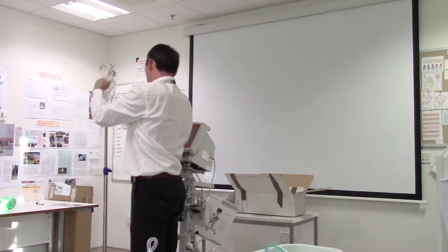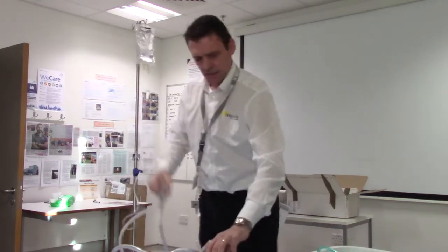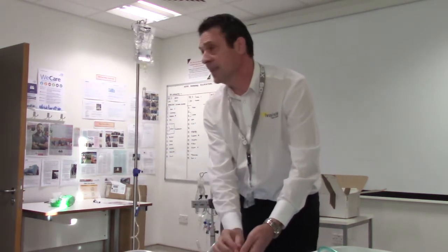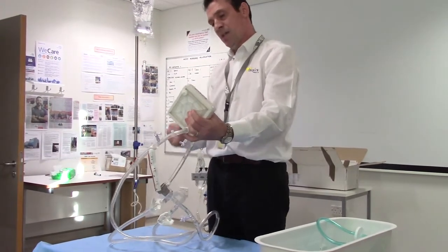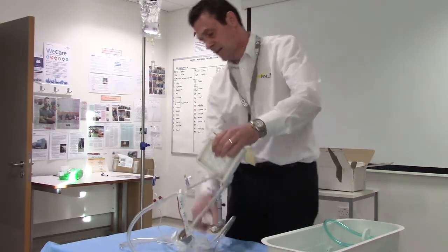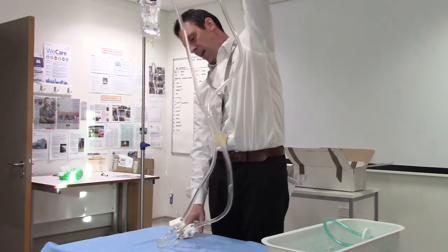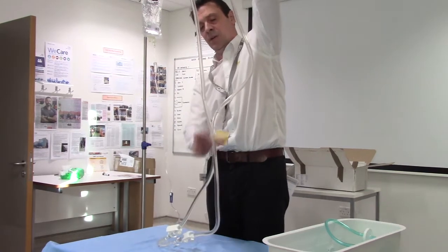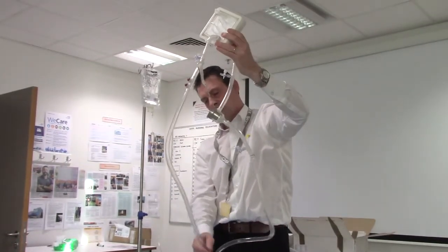With the loop set up, connect your bag of fluids. You have your ILA membrane here with two yellow caps — these are the de-airing ports. There's a hydrophobic membrane in here. As your fluid comes in, your air will come out and be displaced. Remove those caps and save them for later. If you hold the lung uppermost, fluid should fill from the bottom upwards. This is a passive priming — it saves time and is a lot quicker.